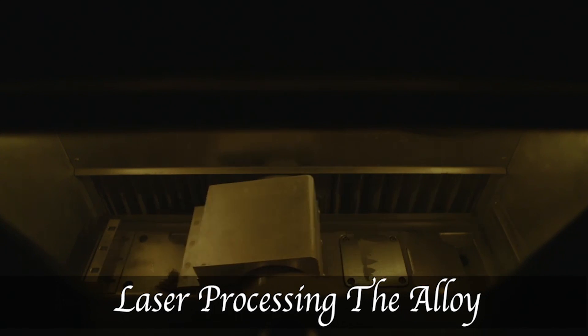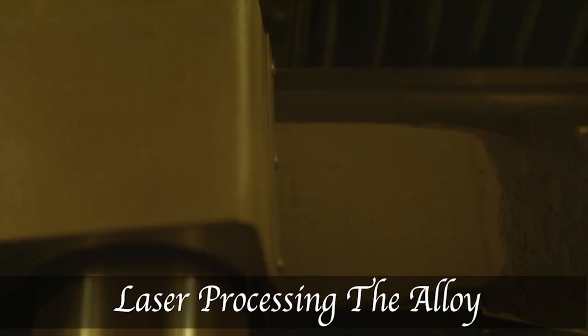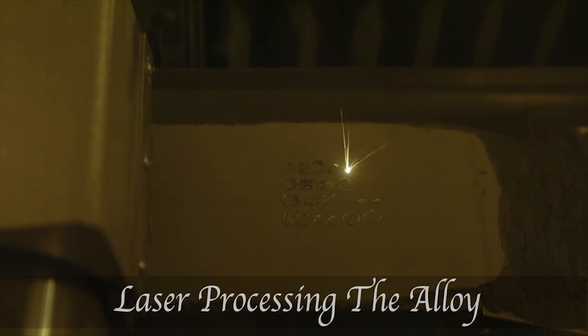This isolated environment eliminates human touch completely, thereby leading to no contamination, which means a very high porcelain bond strength. You can see how the laser is sintering the alloy layer by layer.